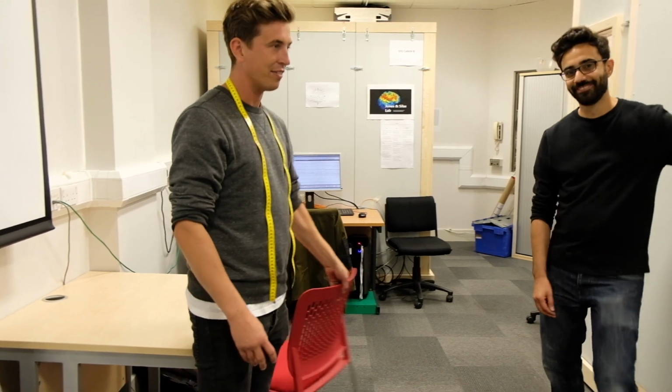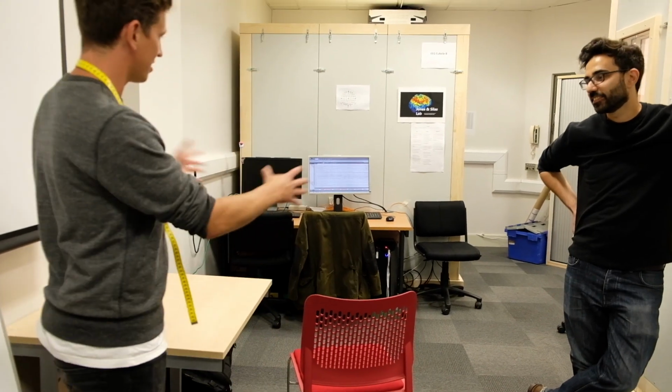Yes, so in this lab, I think a general overview of the lab setup is what we'll do first. So the participant will come in and we'll say welcome, and they'll have a seat, and we use this as a preparation area. And as John said, we'll talk you through exactly how to prepare a participant when it comes to the electrodes and putting them on and so on.